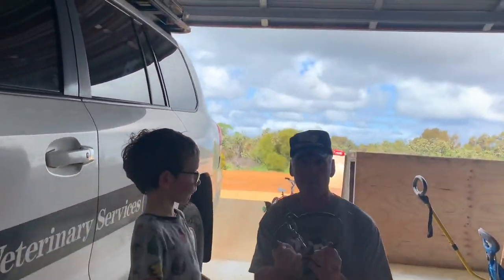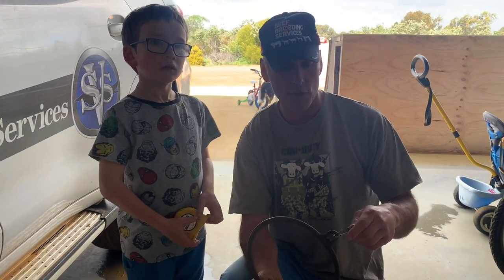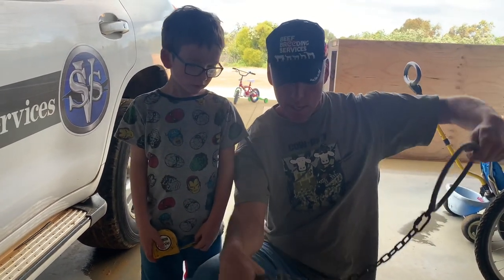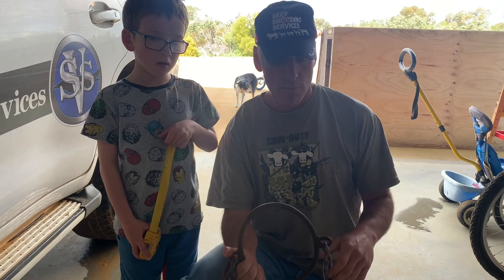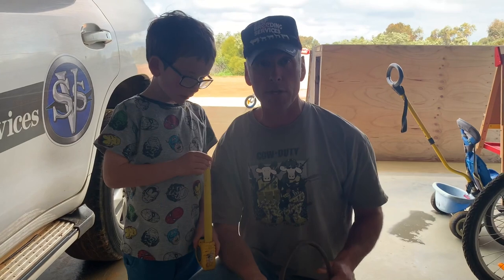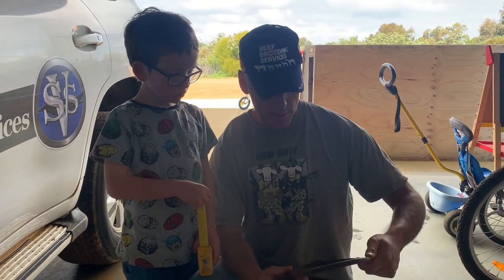So these are the metal halters that I talk about that you see in some of my videos. This was originally designed — the original for this was a fellow that was introducing steers to be taken to the show in lead, so they use this to train them to be led in the show ring. And Swanee, my business partner, went, wow, this would be a great tool for us as veterinarians. The reason is when we put a halter on an animal when we're doing a procedure like removing a cancer eye, or injecting antibiotics behind the eye for a pink eye, or other procedures like stitching up an injury on a face or messing with something on the head of a bull or a cow, we don't want them moving around. And we can clean this in between animals, which is great. So this thing's seen a lot of use over the years.